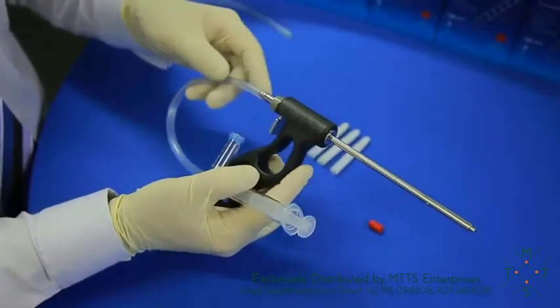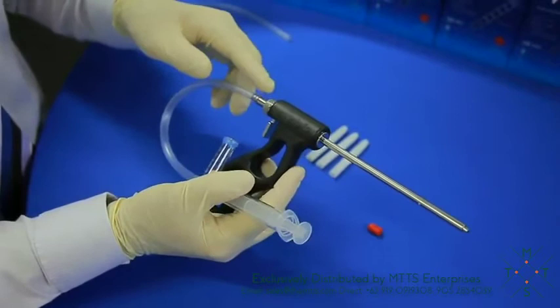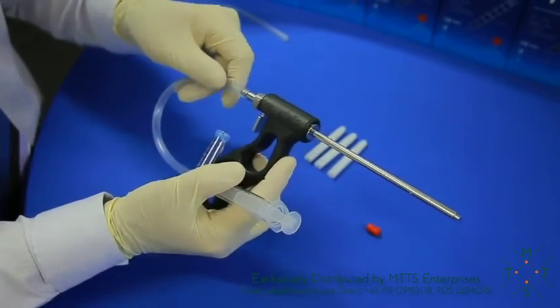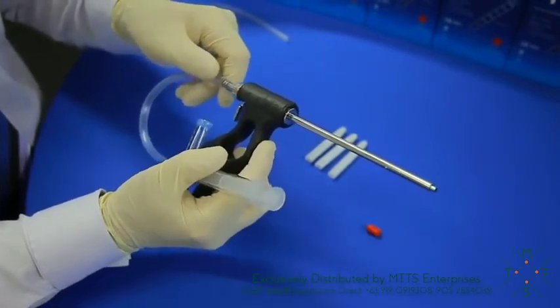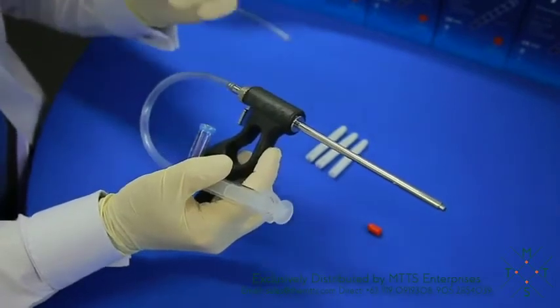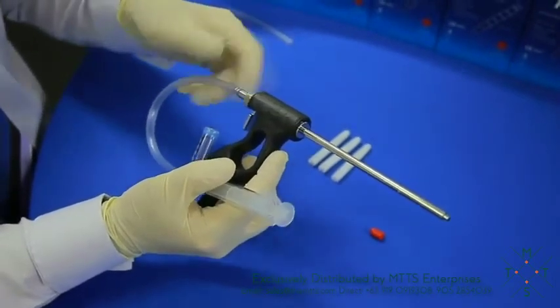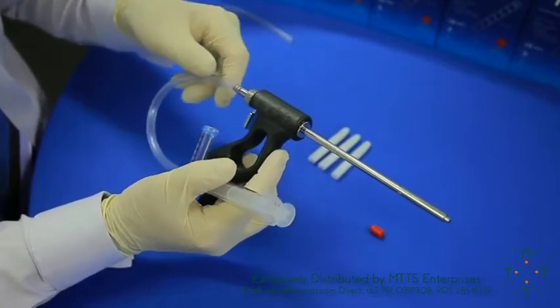The capsules are a single use item, and by placing the tube on the striking piston, you can accidentally push forward which would make you fire the capsule. Once it's fired, the blade's gone through and you will have to use another capsule. So just something to remember.